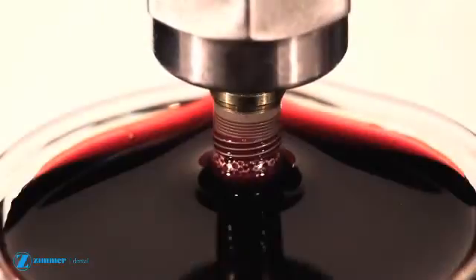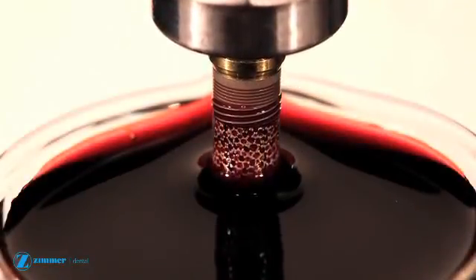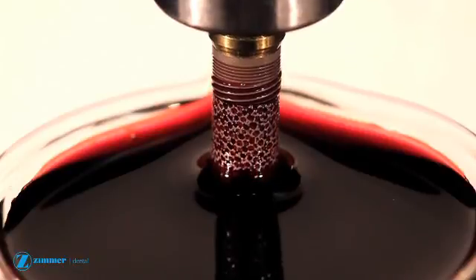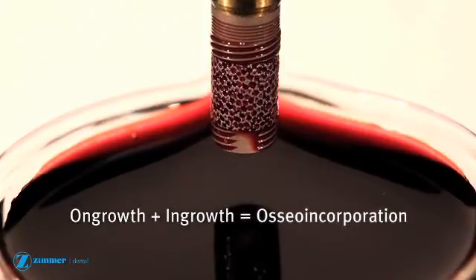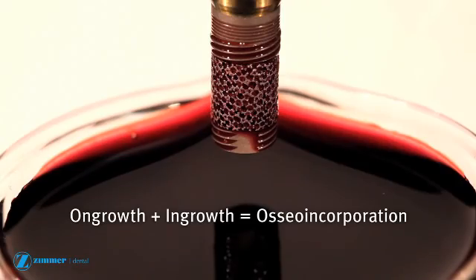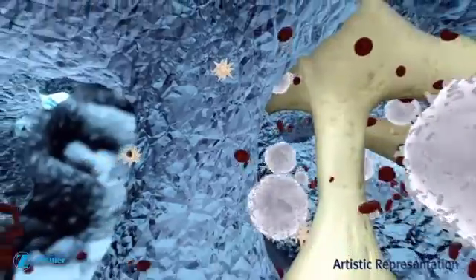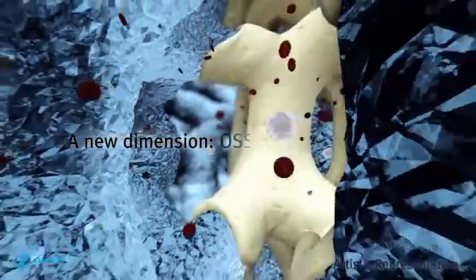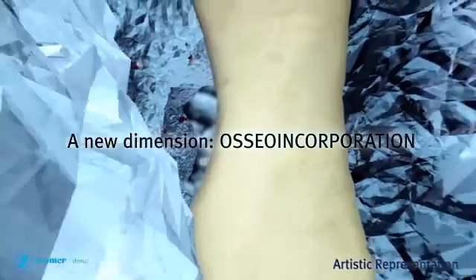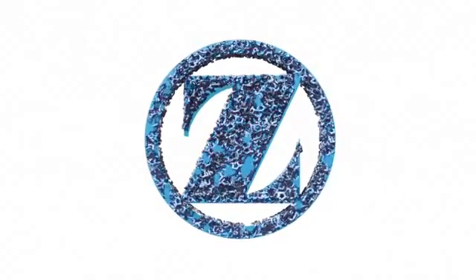This consistent, open and interconnected network of pores is designed for both on-growth and in-growth, a process known as Osseo incorporation. By moving beyond the limitations of bone on-growth, Zimmer adds a new dimension to implant dentistry: Osseo incorporation.